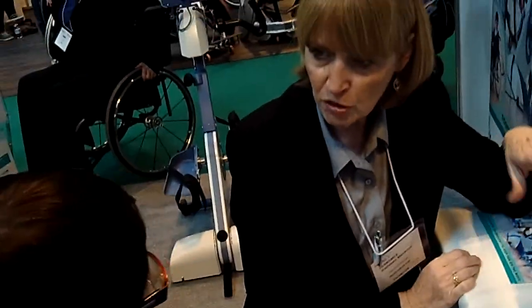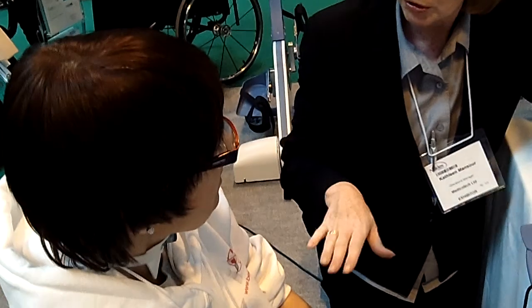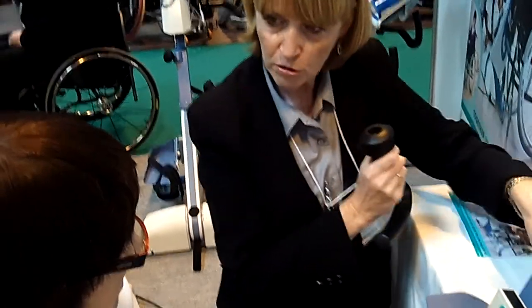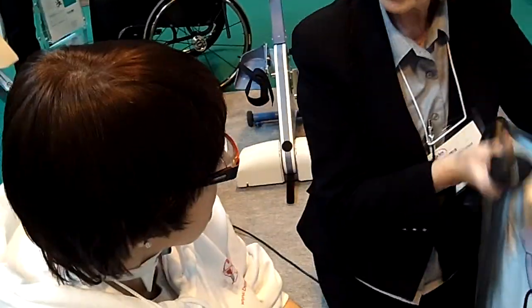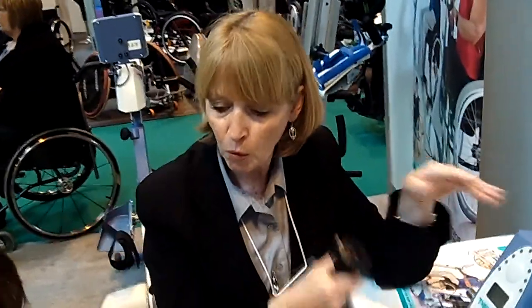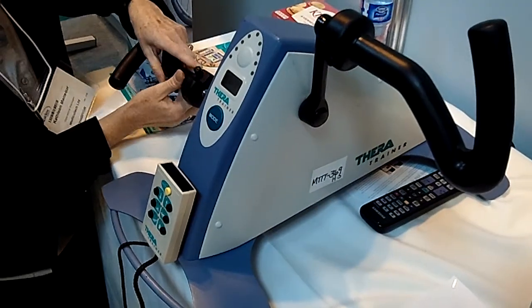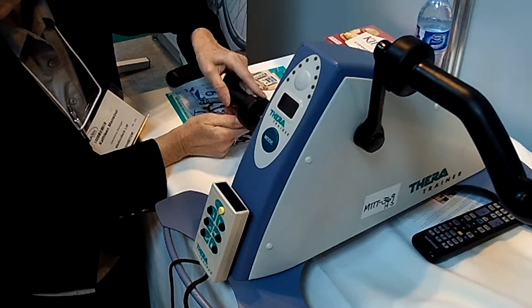Although you're saying you just want to use your legs, if somebody else in the house wants to do their legs, it comes with pedals. You see, there are often pedals that fit on there. So maybe another family member or a friend, if they wanted to exercise their legs, they could do that as well. But completely manual, £695.